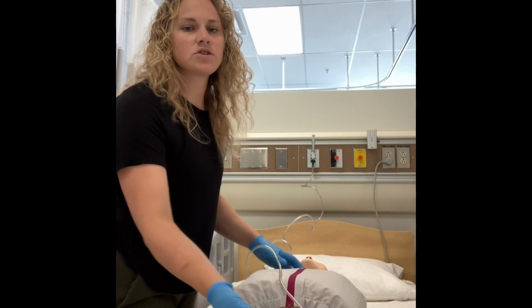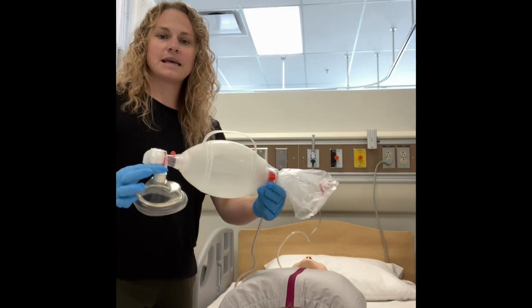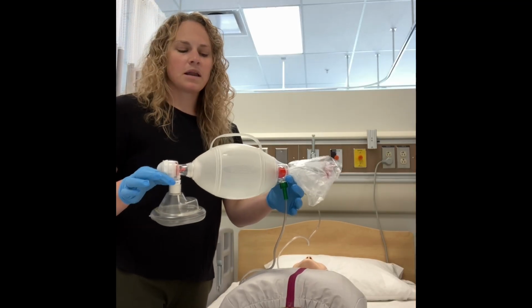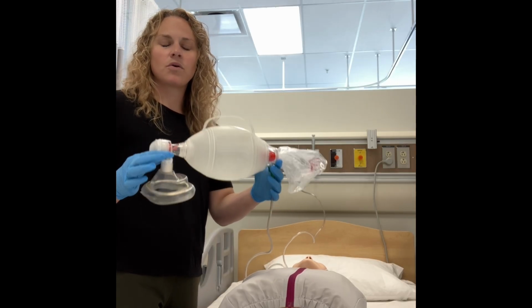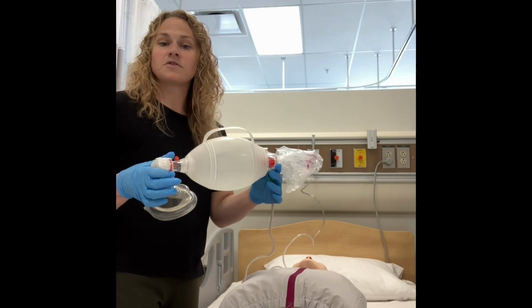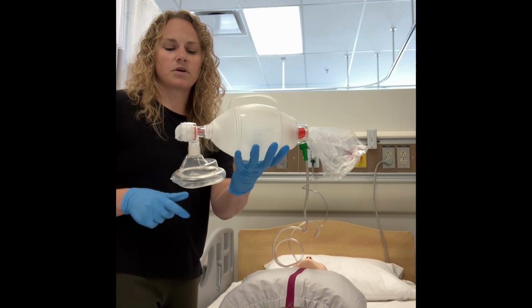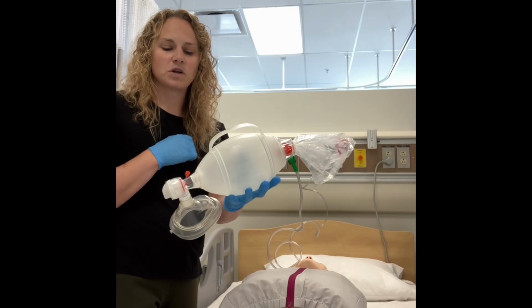The last oxygen delivery device that we talk about in medical studies is a bag valve mask, or what's commonly called a BVM. Now, BVM is used for patients who are not breathing or not breathing effectively in some cases, and it is not used for those who are breathing independently. A bag valve mask has several components to it. It has the mask and it has the bag in which we use.